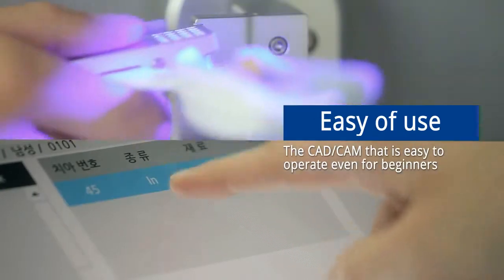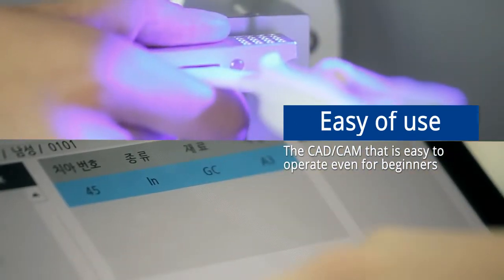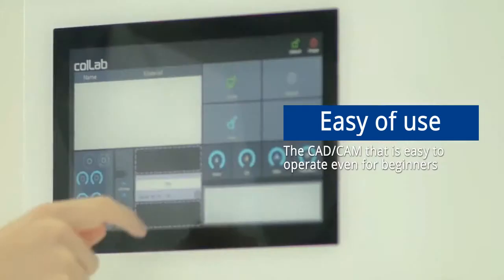EZ, the CAD CAM solution that is easy to operate, even for beginners who do not have any technical backgrounds.